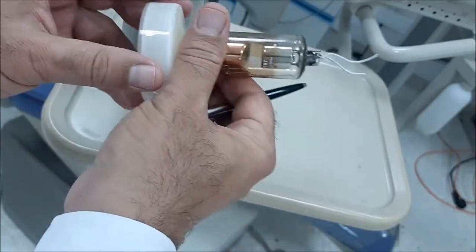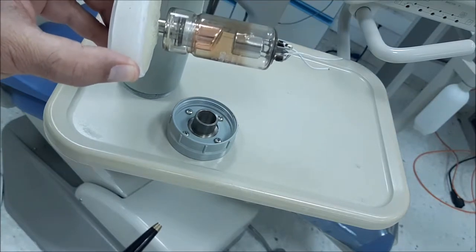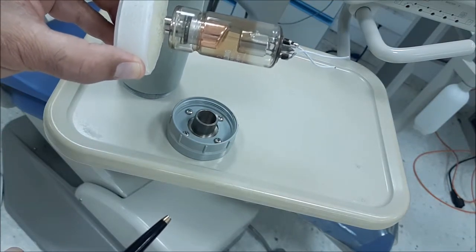When the x-ray is generated over here, it will be in a very big cone-shaped beam.